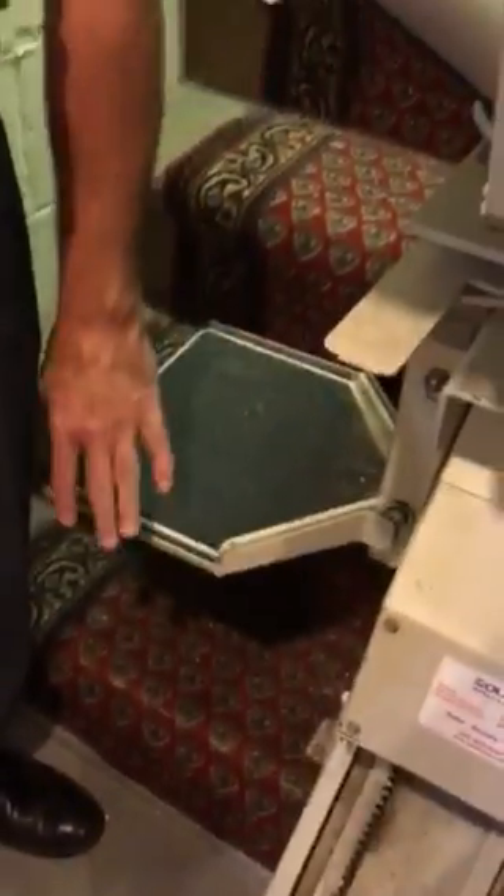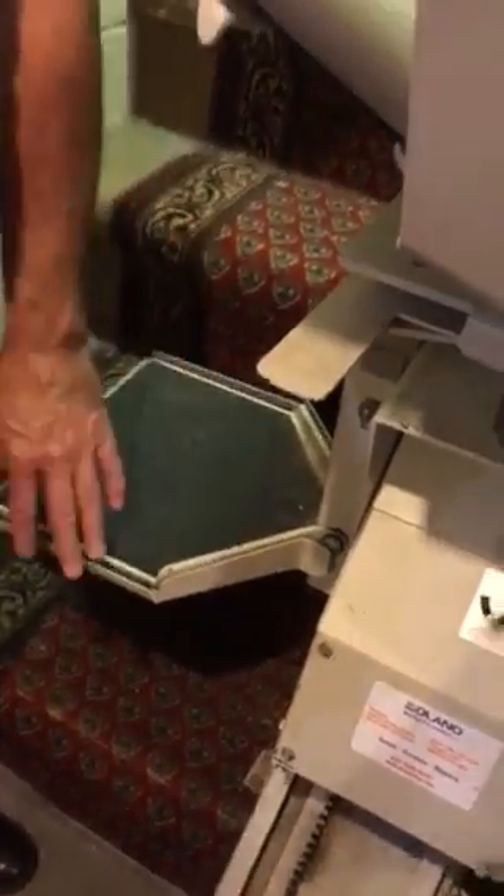On this particular model, we sometimes have to make an adjustment on the seat safety switch — there are actually two screws in there. But for most stair lifts, they all work the same way: they have a seat safety switch and a footrest safety switch. Just try to clear any dust and dirt by activating it — swiveling it, locking and unlocking it a few times. That should cure the problem.